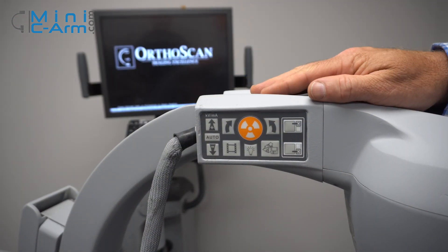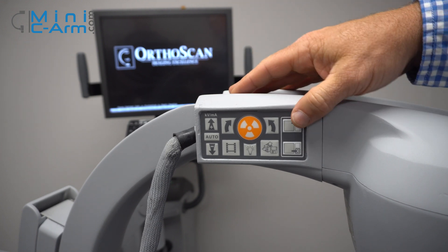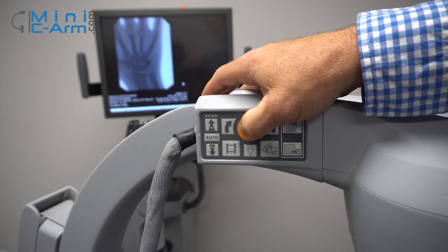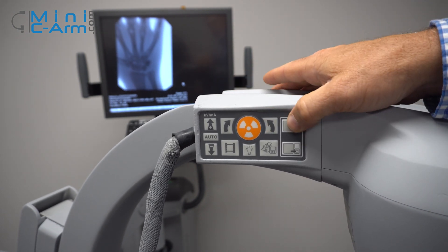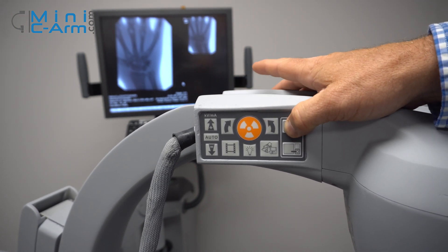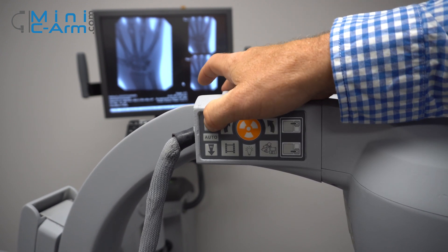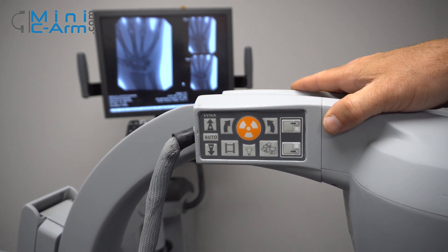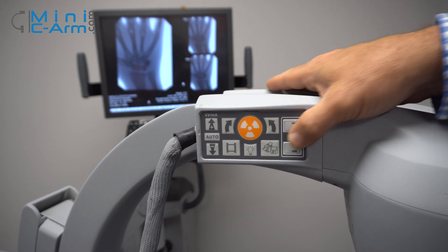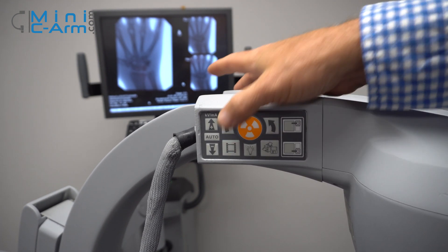The FDOR has bilateral two-pad controls — it's on both sides. You can x-ray from here. You can rotate your images clockwise and counterclockwise. You can also tag them so they don't move for AP and laterals. You can increase and decrease your technique and set it back to auto. You can print and/or save with this button. You can also cine record with that.